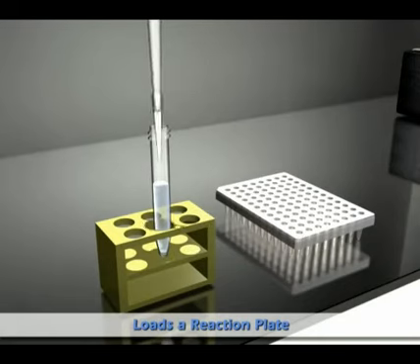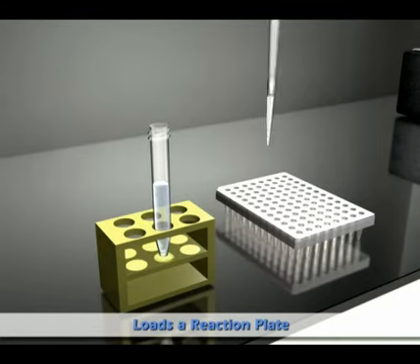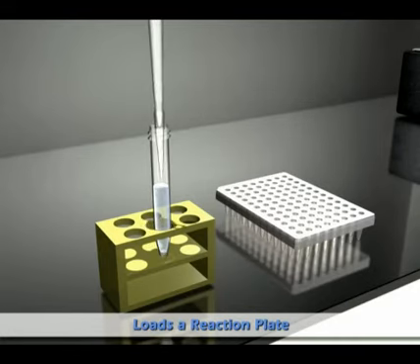All of this preparatory work must be repeated daily and performed in a clean room before the test kit is ready for clinical use.